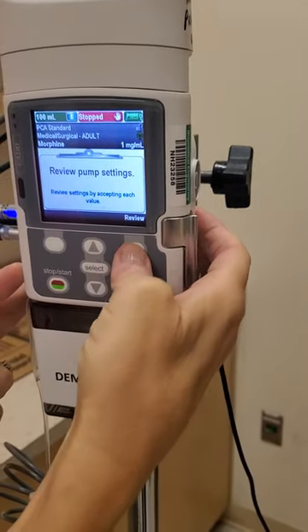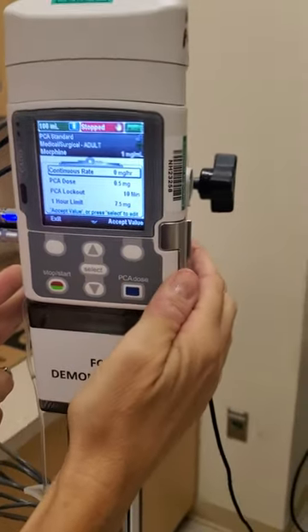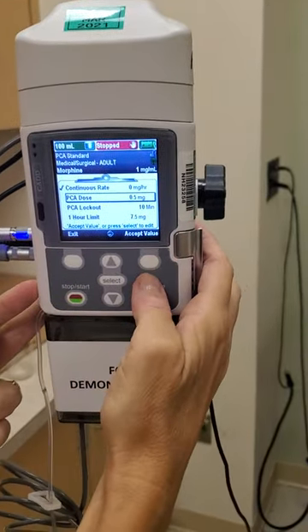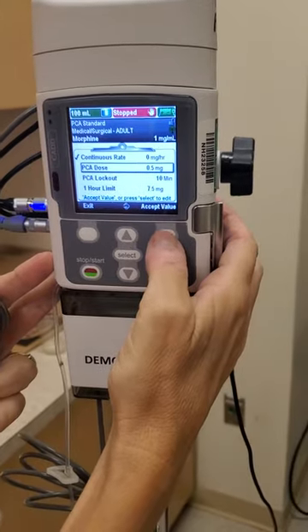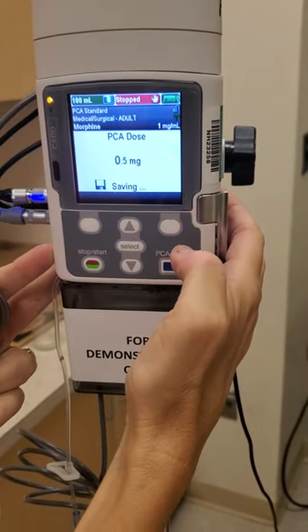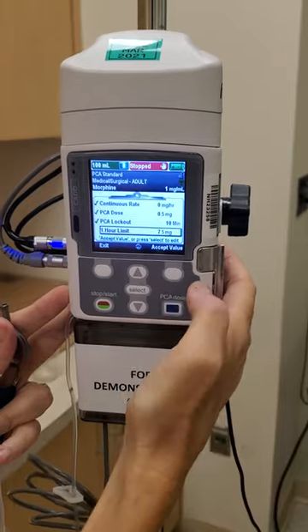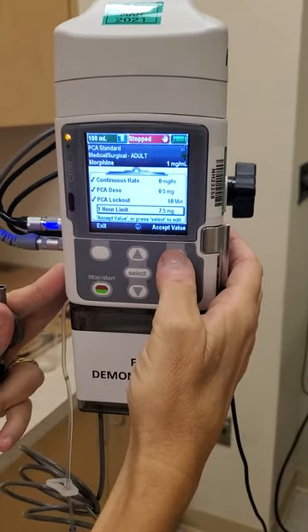Now I'm going to review my pump settings by hitting the button under 'review.' Since this is for patient-controlled analgesia, I do not have a continuous rate, so I'll accept the value of zero — it puts a check mark next to it. My PCA dose for demonstration is 0.5 milligrams. The lockout is also from your order; the patient can receive 0.5 mg of morphine every 10 minutes. I'll accept that value, and the hour limit is calculated so the patient cannot give themselves more than what is dosed.